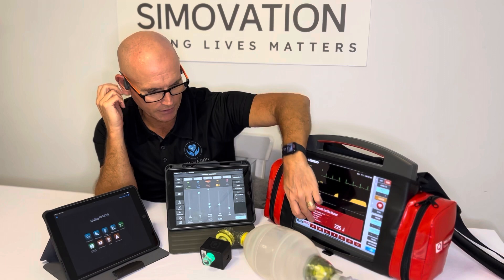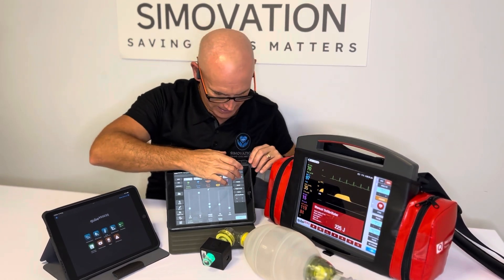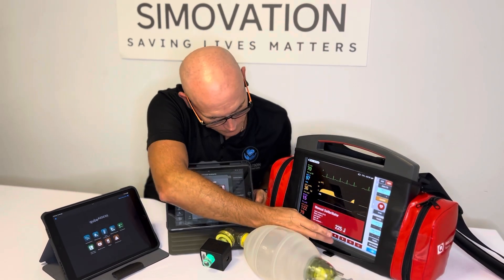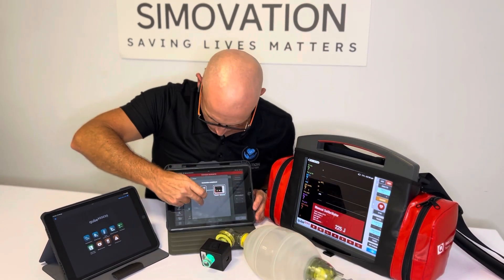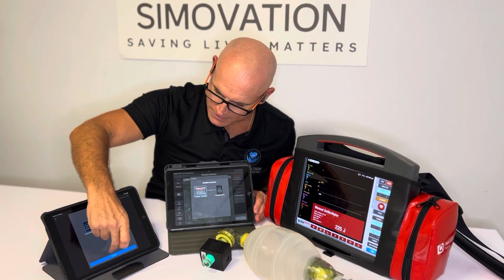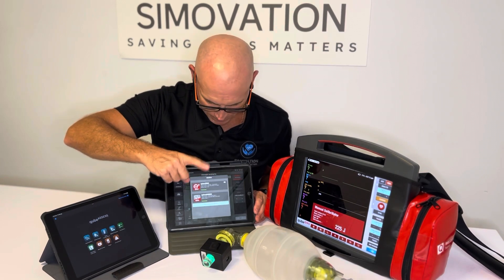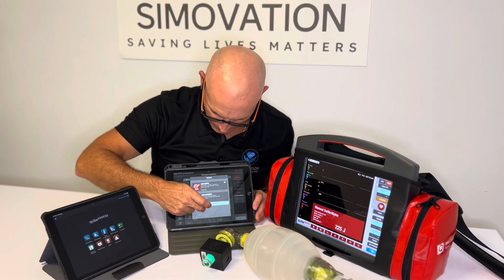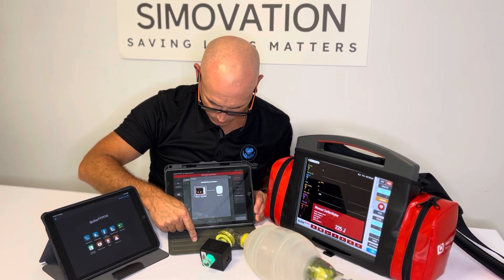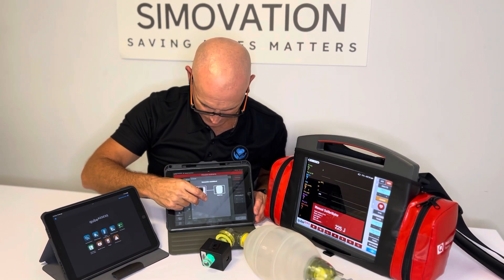Then we have the 12-lead ECG. I'll connect everything up now — I apologize, I could have edited this video but I'm taking a shortcut here. Once I start the scenario, I'll be able to put the leads on and then show you the 12-lead ECG.